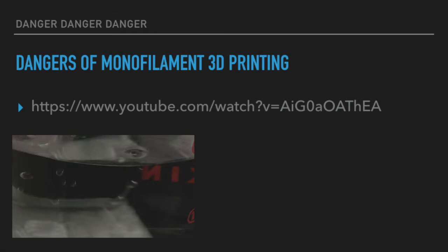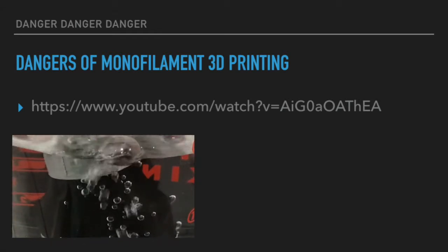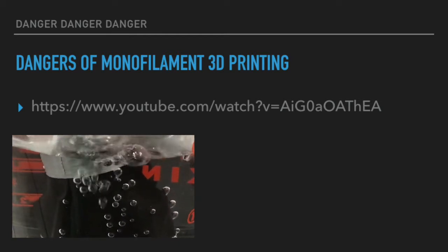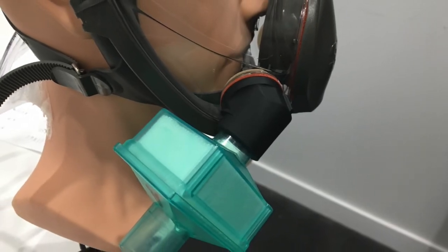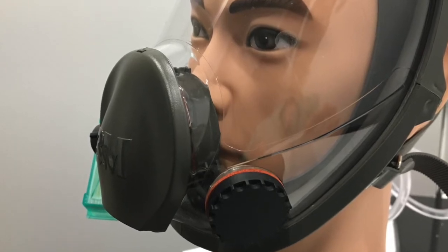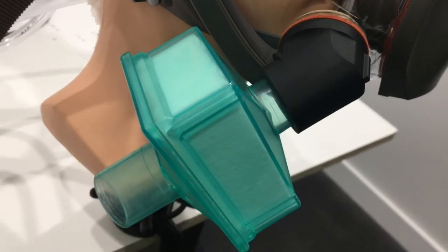For this video, out of convenience, we did use the ABS monofilament printer. But I think if you're going to do this in real life, you should use a different type of technology for 3D printing, or if you do use a monofilament printer, use a sealant. To actually show that a sealant will improve the performance of this adapter, we compared the naked adapter and plug to a sealed one with a silicone-based sealant.